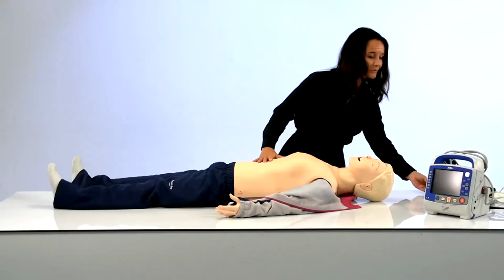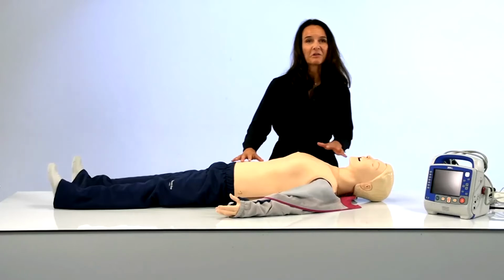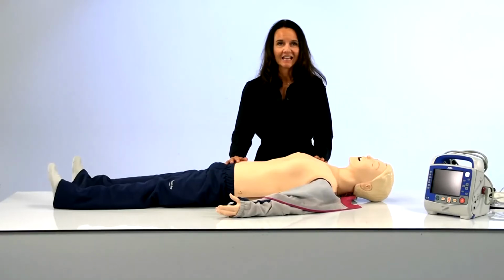I would like to end with a sneak peek at something new and exciting, especially for those of you using PC Skill Reporter, which was discontinued earlier this year. I'm going to move over to my laptop. This brand new application includes the best and most popular features of the SimPad Skill Reporter app for tablets, and the discontinued PC Skill Reporter.